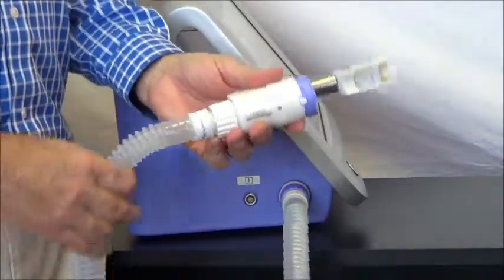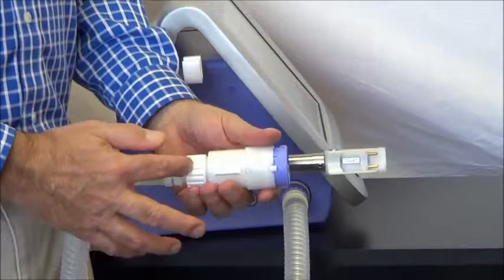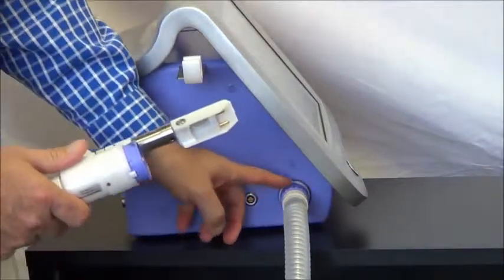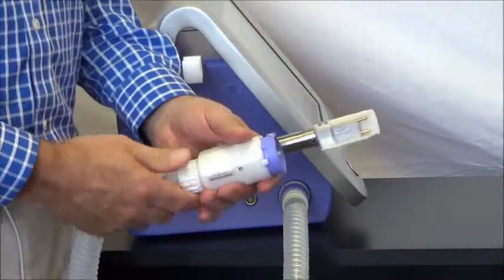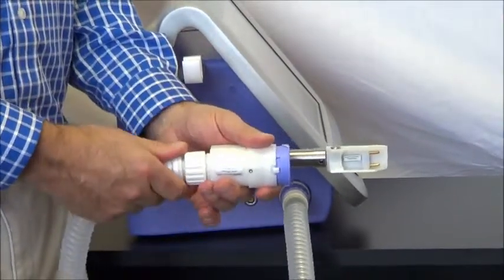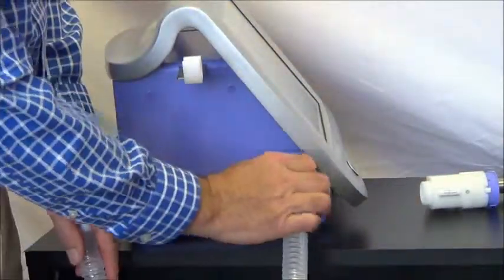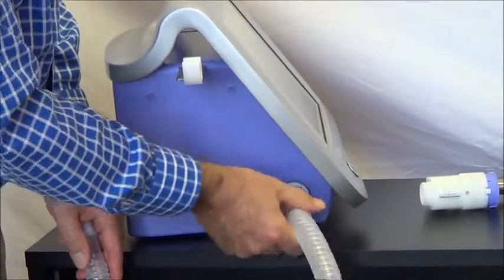The next part is the patient tube — this corrugated tube. Note that the white nut is on the end that matches the white of the DLCO valve, and the purple nut goes on the device side. They're color-coded for that purpose. To remove it, disconnect and unscrew the nut on the DLCO valve end, then go to the device, unscrew that nut, and remove the tube.